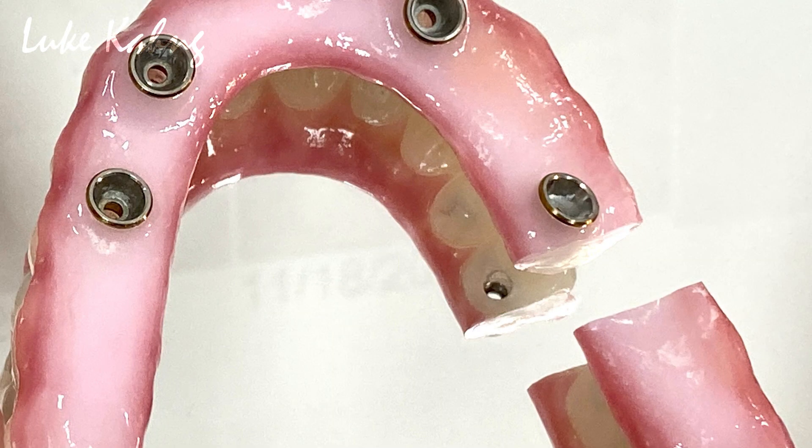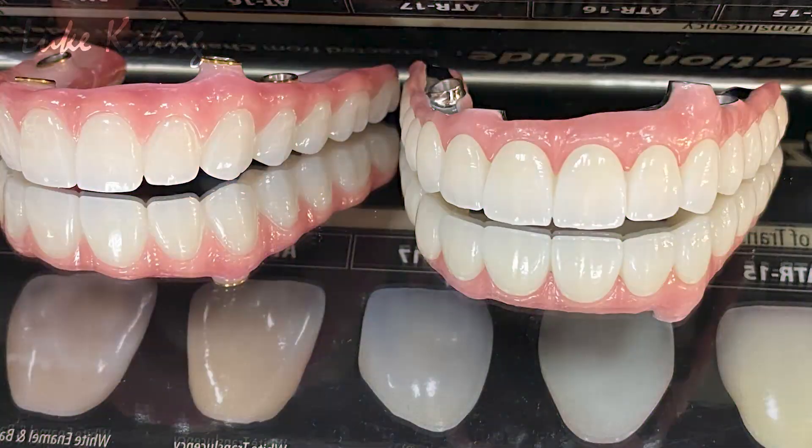So we made it and the zirconia bridge cracked. Cracking has so many reasons. The problem is the doctor did not know — they placed implants and sent to the lab thinking full-mouth zirconia is no problem. But in reality it's not working, because different implant sizes create huge pontic stress, especially when the patient is a grinder. The partial gets more forces and eventually develops micro-cracks and finally cracks.